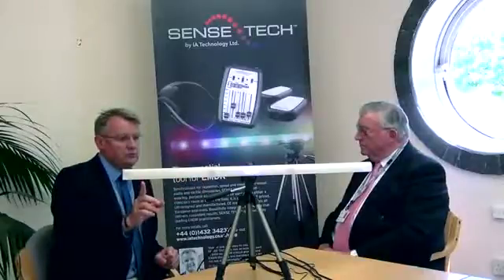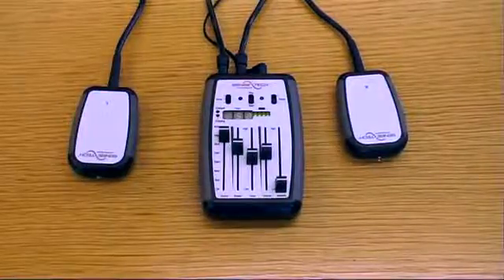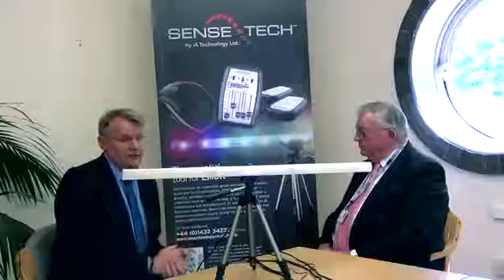It gives us the opportunity to do visual eye movements, we can also do it acoustically with the headphones, and we've also got the pulses as well to do it somatically. The other very effective thing about the kit is the fact that everything is together.